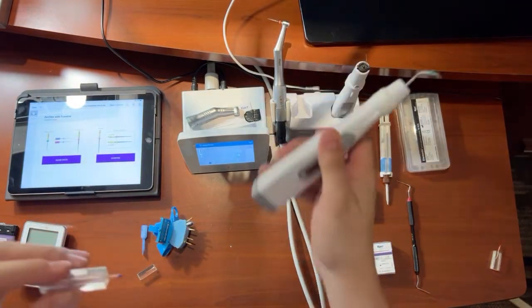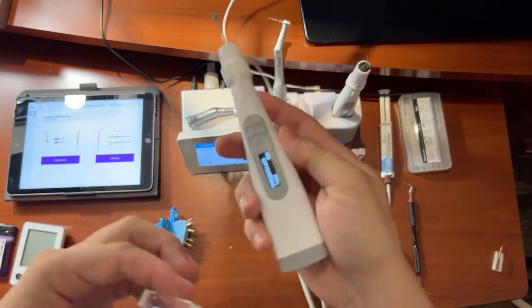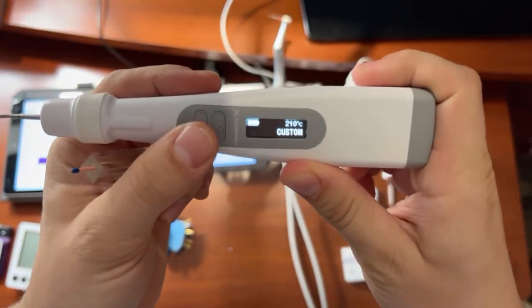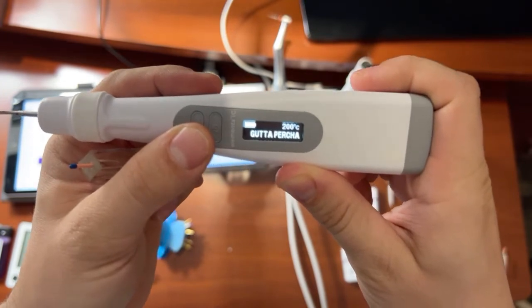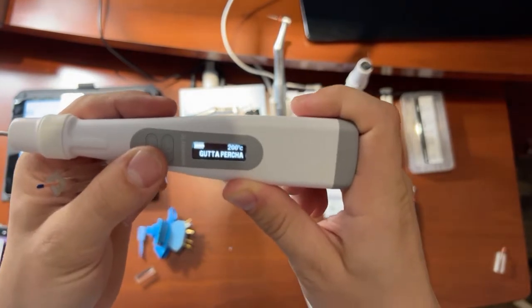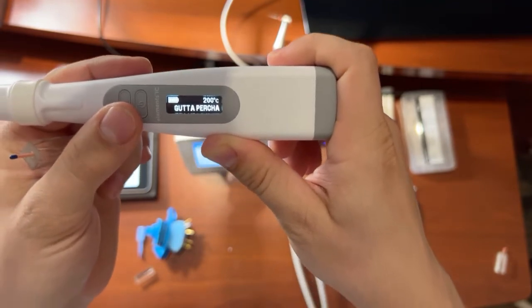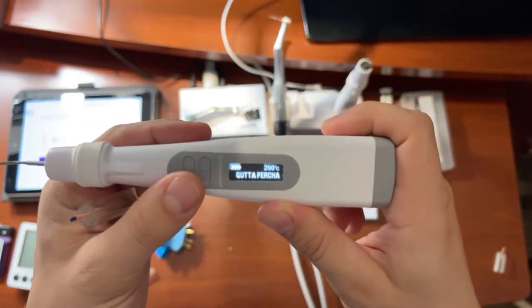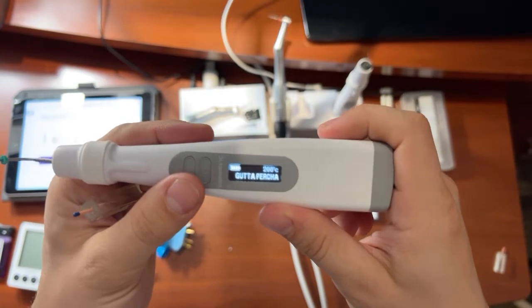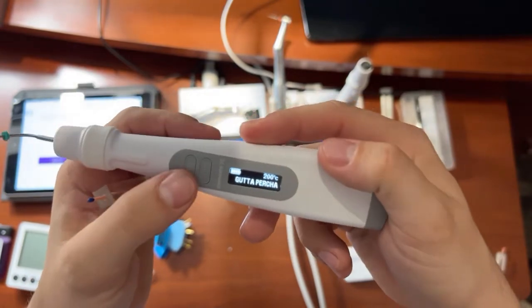So we have our down pack unit here. And so I'm going to go ahead and turn that on. And it already has a couple settings. You can go through the different modes. So you have custom and gutta percha mode. If you're using a bioceramic sealer, you're going to want to be a little less hot. I think bioceramics require that you're a little under 200 degrees Celsius. I believe it's somewhere in the 180s to 190s. So I would research that with your bioceramic sealer if you use that. But again, you can change that here with the mode button.